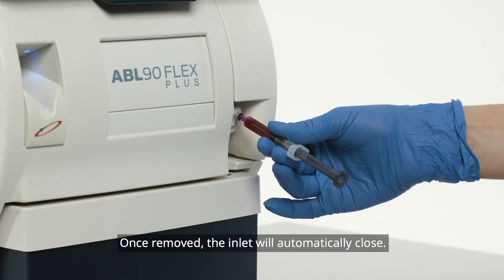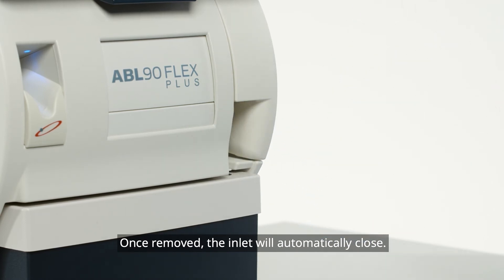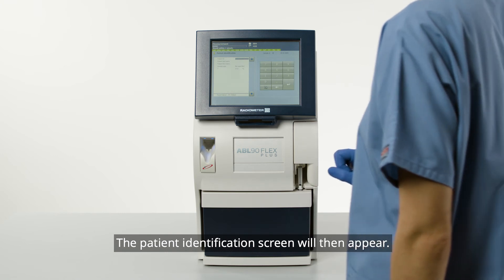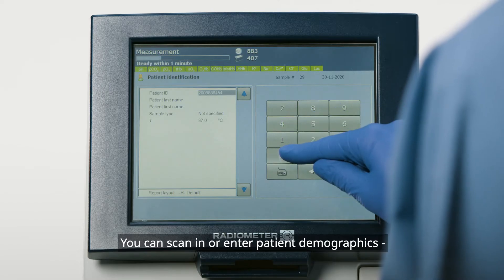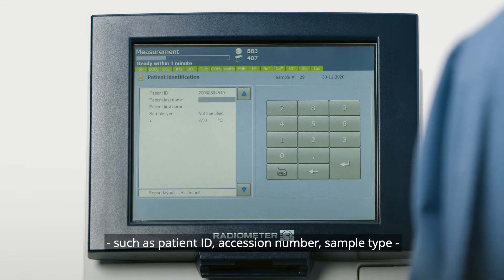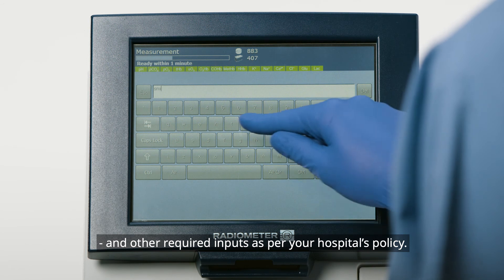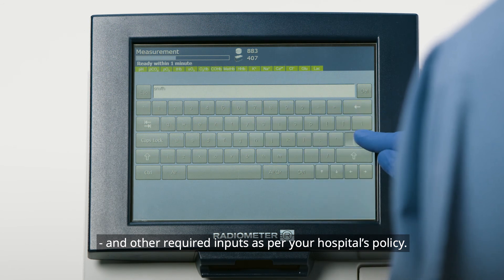Once removed, the inlet will automatically close. The patient identification screen will then appear. You can scan in or enter patient demographics, such as patient ID, accession number, sample type, and other required inputs, as per your hospital's policy.